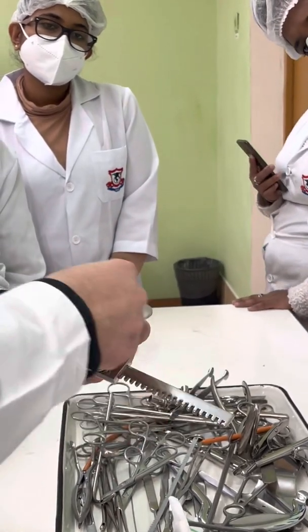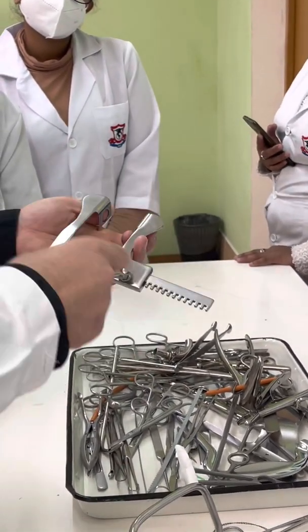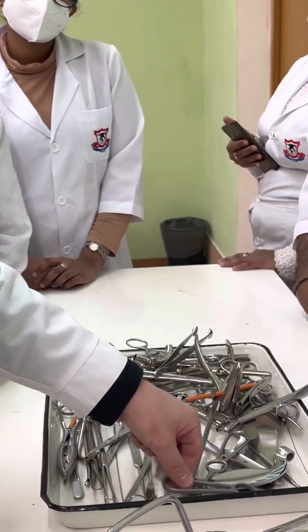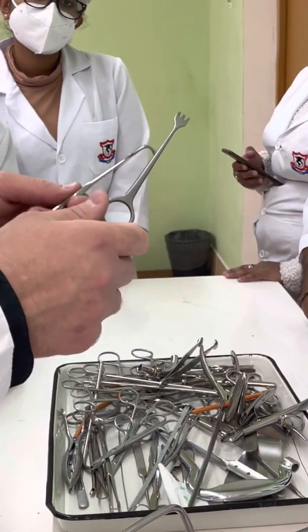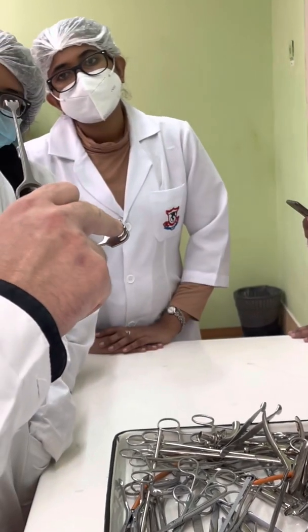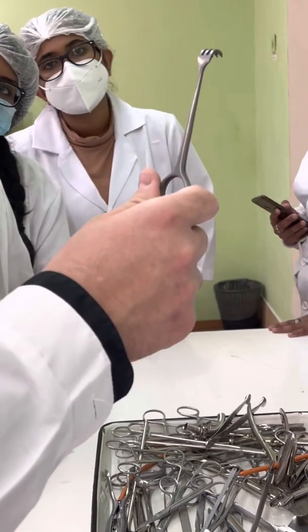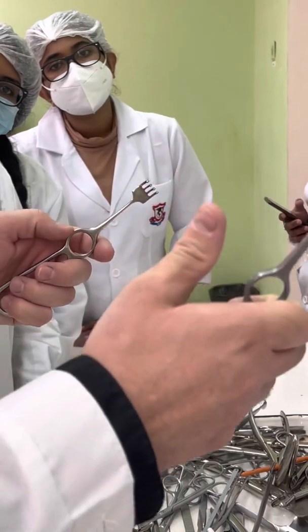Mechanical retractor — used for both abdominal and chest wounds. It holds and fixes the wound in an open position. We can also use additional hooks. Hooks with four teeth and blunt edges. Hooks with three sharp teeth. The number of teeth can be different, and the size as well.